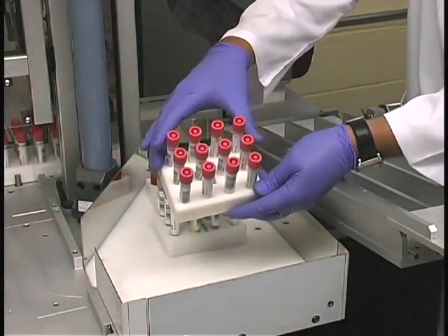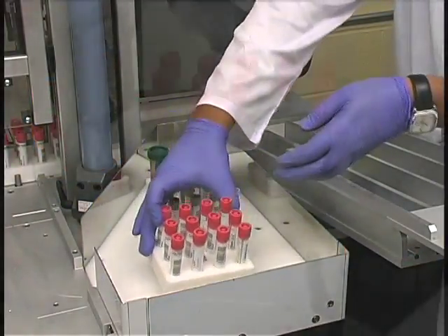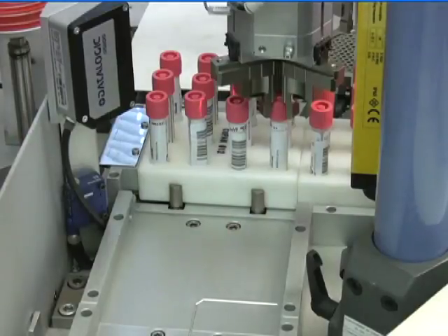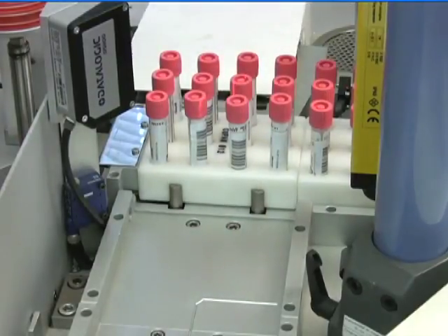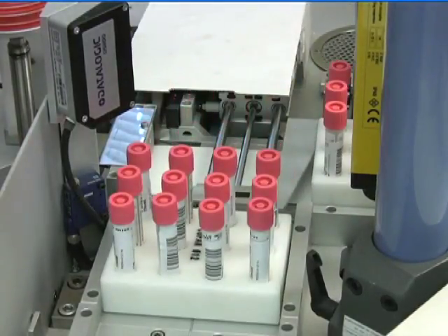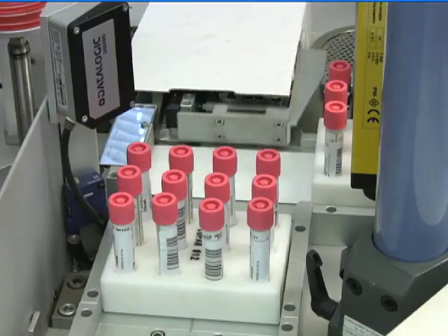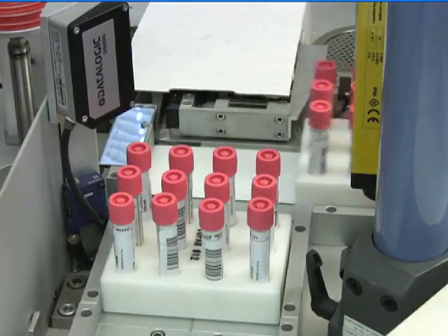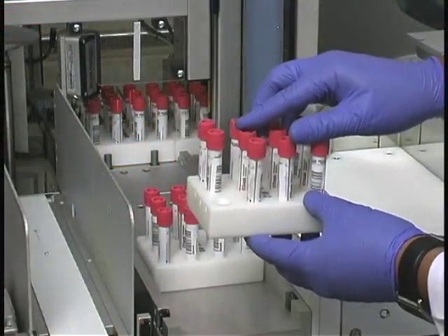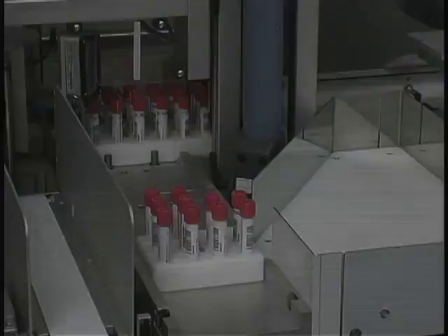Once the entire pallet of specimens has been processed, the Teflon pallet is forwarded to the specimen exit aisle. Once the exit aisle is full of completed pallets, a sensor prompts the operator to return to the instrument and unload the processed pallets.